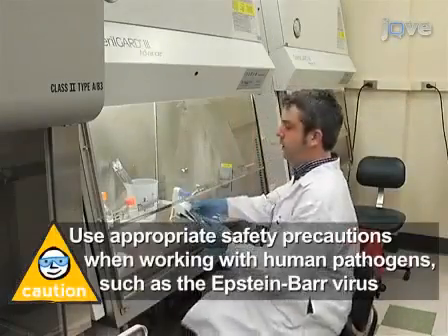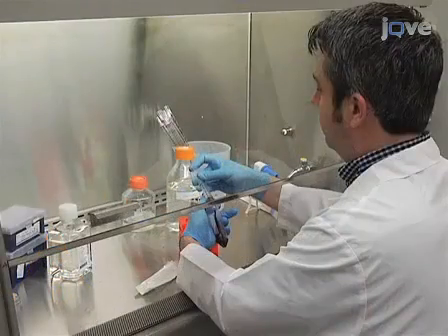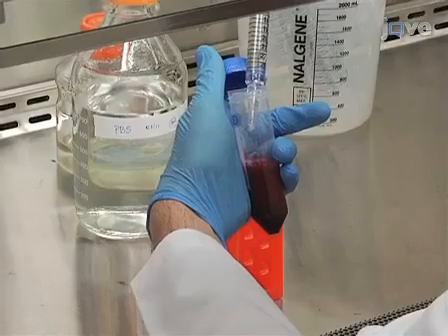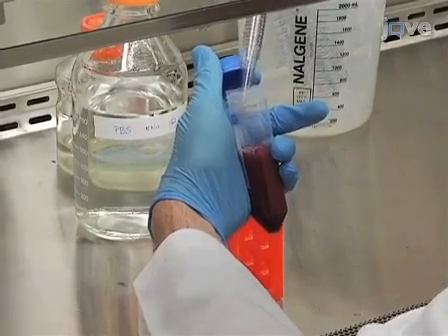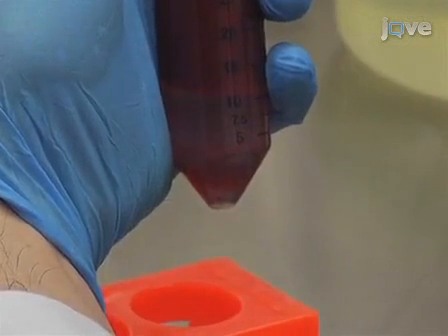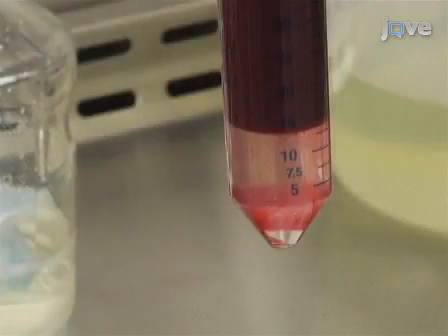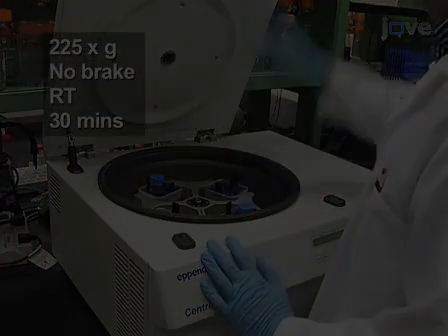After drawing 10 millilitres of blood from a donor, add the heparinized blood to a 50 milliliter conical tube and dilute it 1 to 2 by adding 20 millilitres of room temperature PBS to the tube. Now underlay the diluted blood with 15 millilitres of Ficoll-Hypaque lymphocyte separation medium and then spin down the blood at 225 times G.